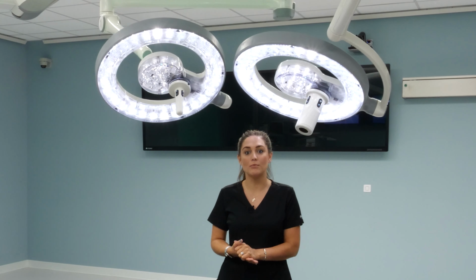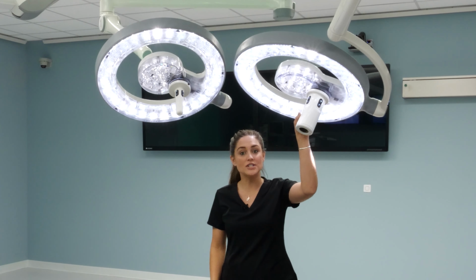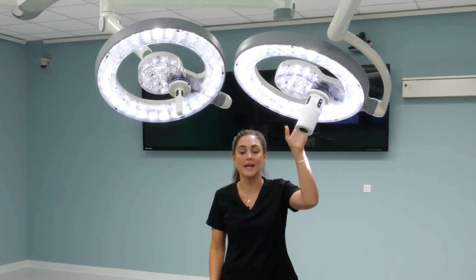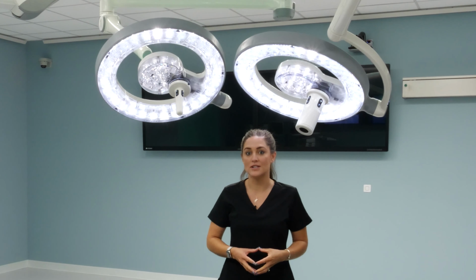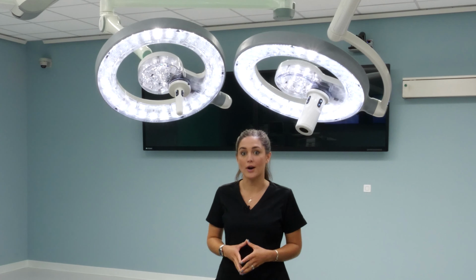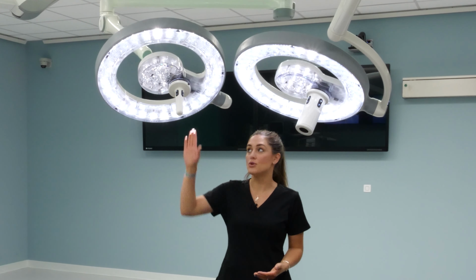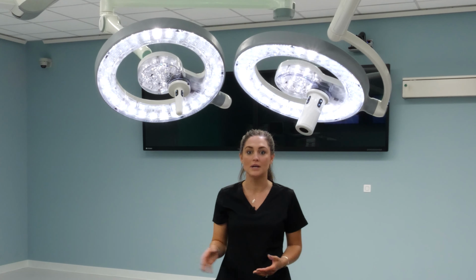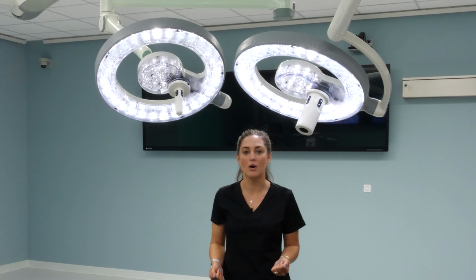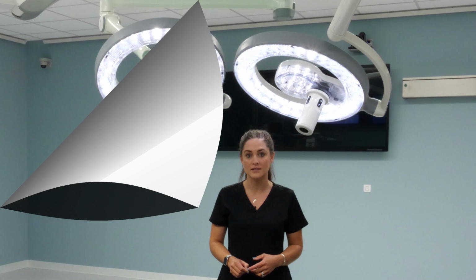Now I'm going to go over the removal of the actual handle and camera itself. One thing to note is that Steris has the ability to do an HD in-light camera or a 4K in-light camera. When designing the suspension system, one key feature that we were asked for by customers was a toolless option to remove your handles so that you could take your camera from room to room. Say Dr. Smith was going from OR5 to OR6, but you only have one in-light camera to use. You can easily move that camera between cases.